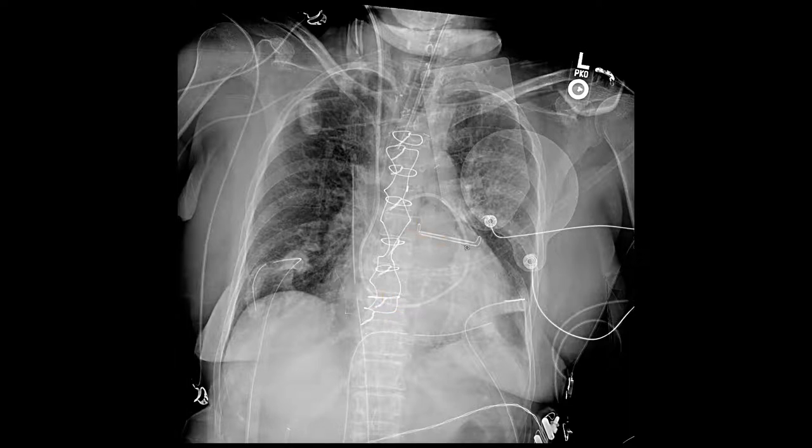This piece of metal going across the heart here is a left atrial appendage clip. This patient also happened to have a mitral valve replacement — this is where the mitral valve lives. The left atrium was likely enlarged, and when that happens the left atrium doesn't contract well. You can get thrombi developing in the left atrial appendage due to poor blood flow — that's a nidus for a clot to form. A clip is placed across the appendage to seal it off from the rest of the body so it can't throw thrombi systemically.